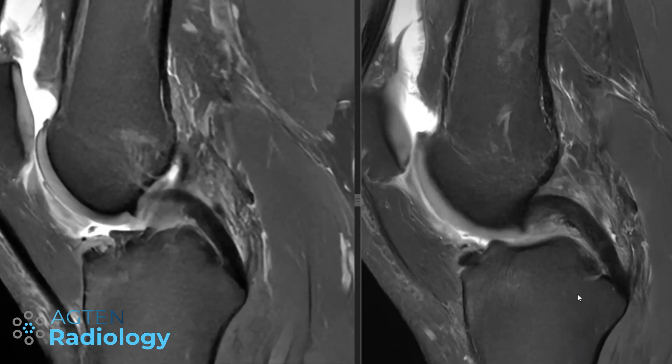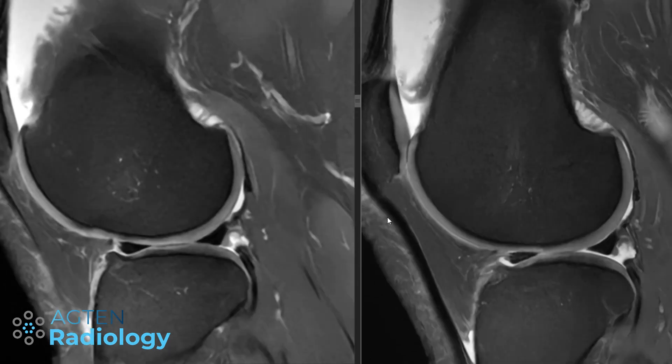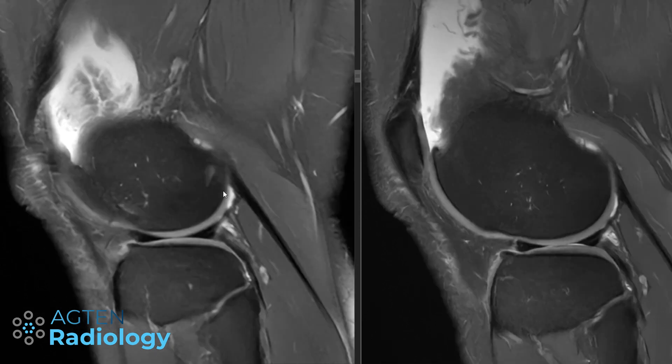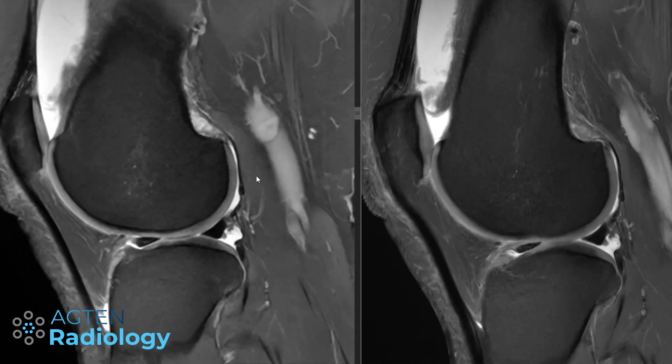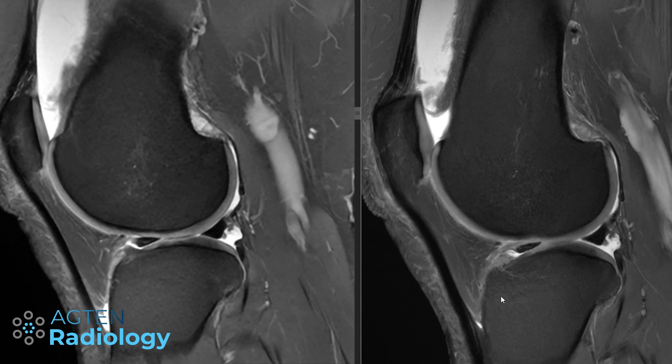Going a bit faster now. We can see all the findings — anatomy nicely delineated, tendons, meniscus, cartilage — everything looks pretty nice.